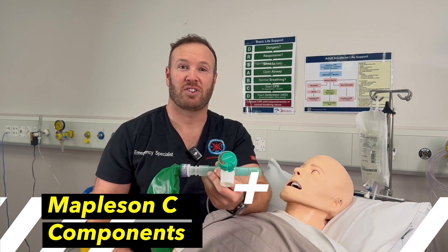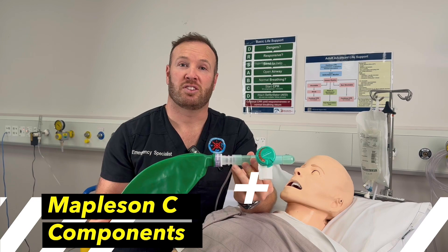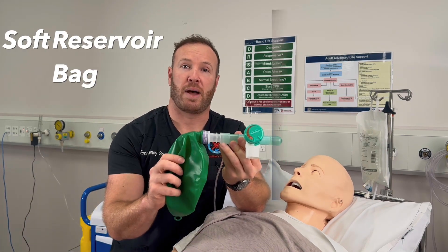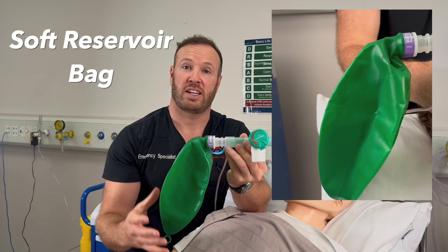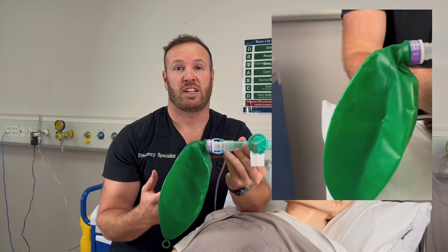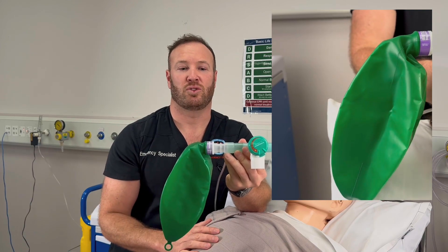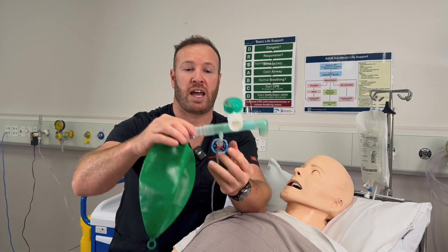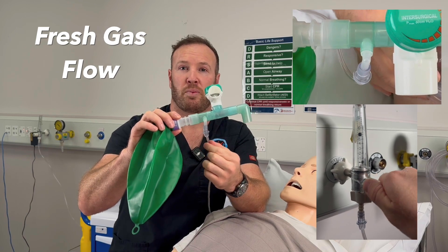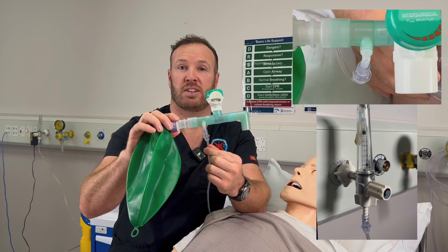Now let's take a look at the Mapleson C Circuit. Here I'm holding a Mapleson C Circuit, which is what we use in our emergency department. The most striking difference is that it's got a soft reservoir bag rather than the hard self-inflating one we're used to. We'll talk about why that's useful in the setting of pre-oxygenation and procedural sedation in the spontaneously breathing patient shortly. The next thing to point out is where the fresh gas flow attaches — this is where you connect your wall oxygen, and we'll talk about what literage you need to run when we go through how to use it.